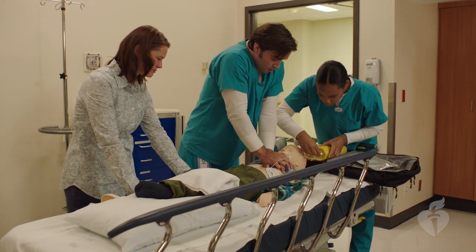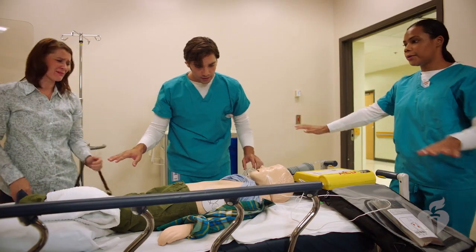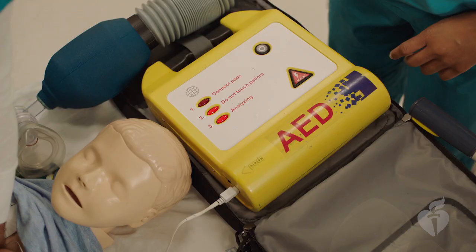The AED may take about 5 to 15 seconds to analyze the rhythm. The AED will deliver an audible prompt when it's ready to analyze the rhythm, followed by a prompt to clear the child or infant. The rescuer should strongly repeat the command to clear, checking visually to be sure that all rescuers and bystanders receive the command. Once the AED completes its analysis, if a shock is advised, it will charge. Shock advised. Charging. Do not touch victim. Clear. Most devices will prompt again to clear the child or infant.